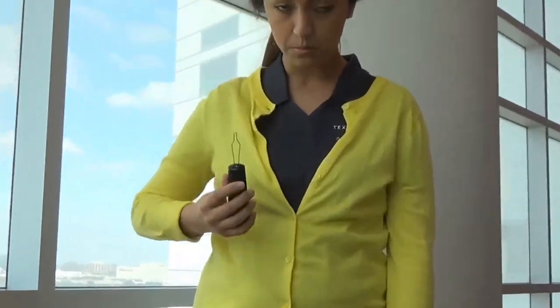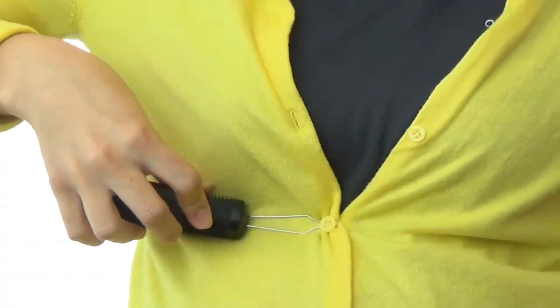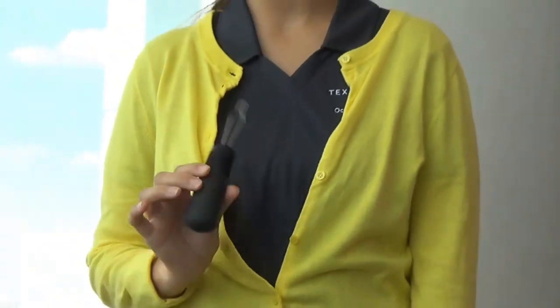To un-button your shirt, take the button hook, loop the middle part through the button. Stabilize your shirt if you can, and go down and around the hole. Now with all things, using a button hook is going to take time, but with practice, you'll be a pro in no time.